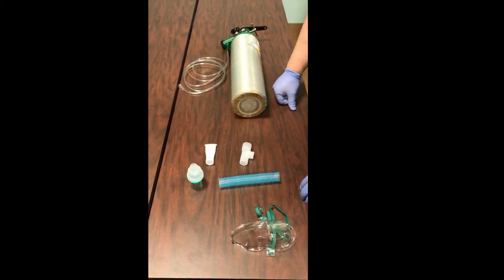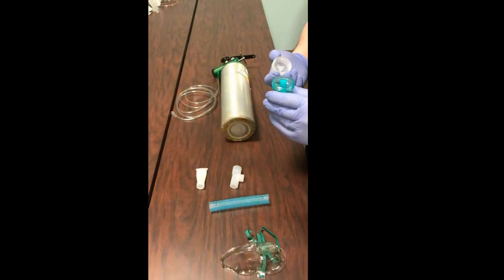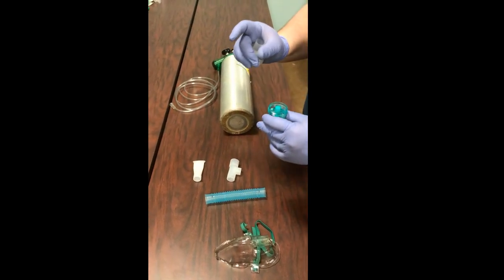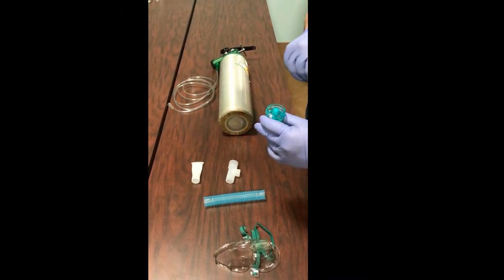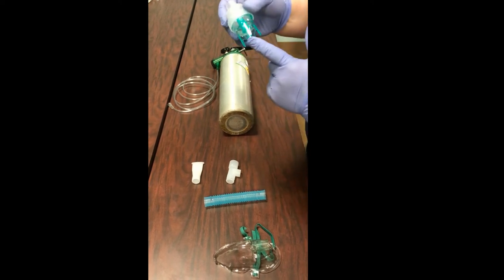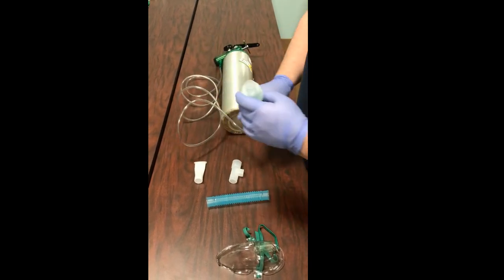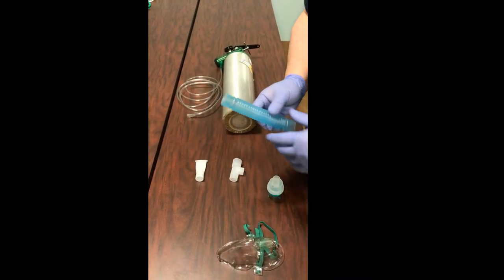What we have here is our chamber. I've already put in a little bit of saline just for demonstration so we can see how it aerosolizes into mist. This is where the albuterol will come in — it fills up the chamber. This end is where our oxygen is going to attach, and the other end attaches to our oxygen tank, just like everything else we've talked about.